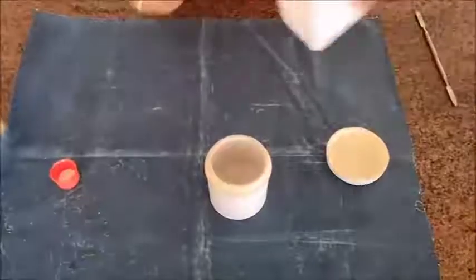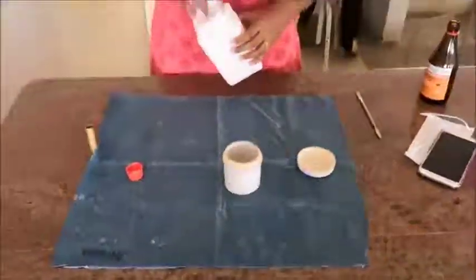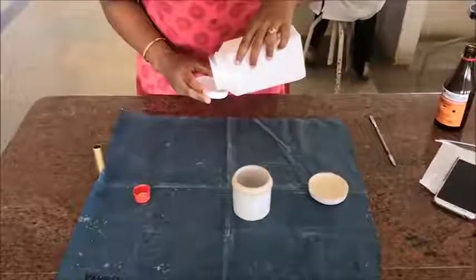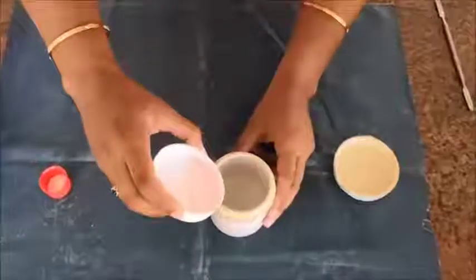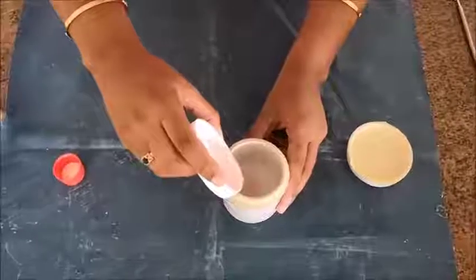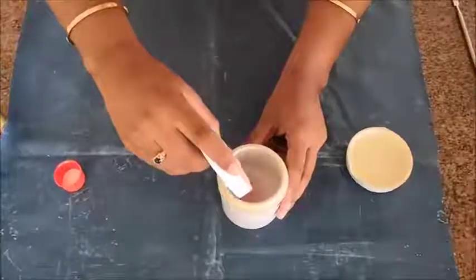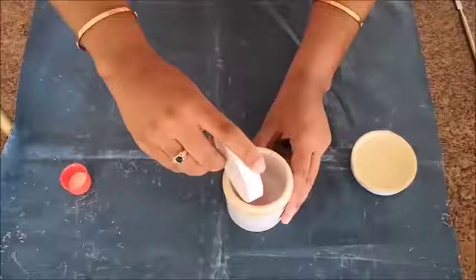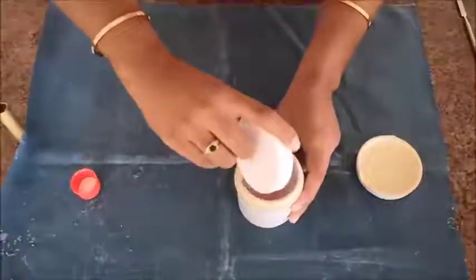In this video we are going to see the stages of polymerization — that is, the changes which take place during the polymerization reaction. Here, first we are taking an acrylic jar; in that we have placed the monomer, that is the liquid, and then we are placing the polymer, that is the powder, so that it gets mixed well with the liquid.